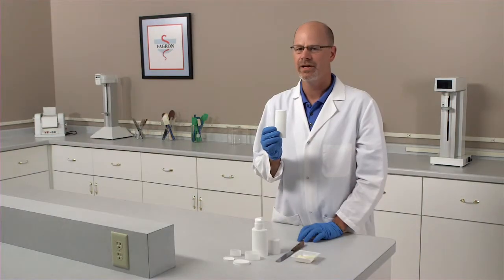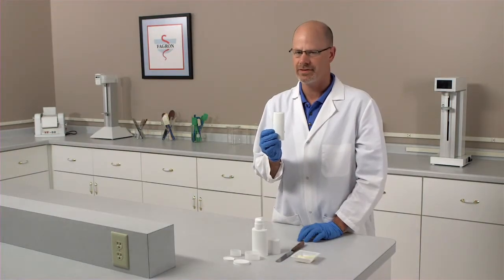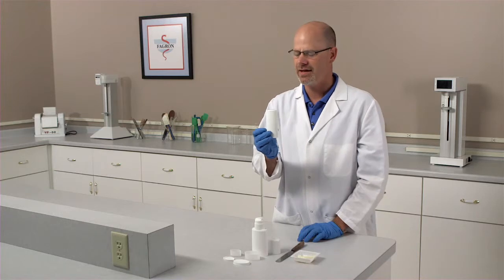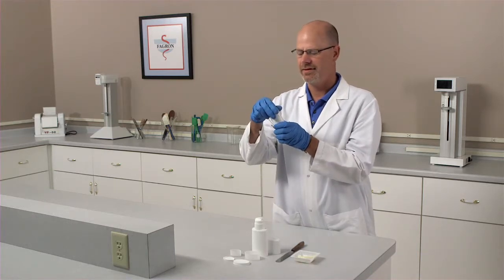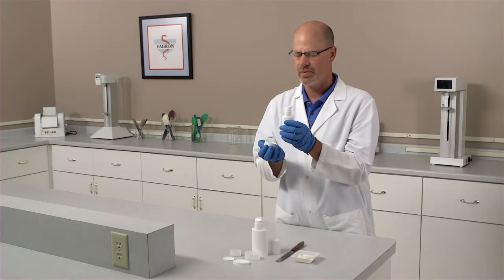Here is Fagron's metered oval pump dispensers. This device comes as a 30 ml or 30 gram dispenser. You get three pieces with this device.